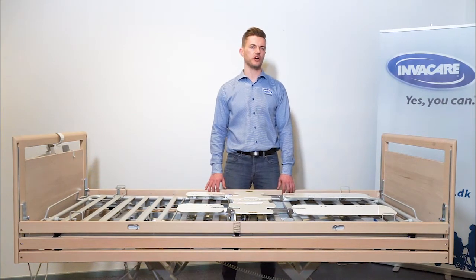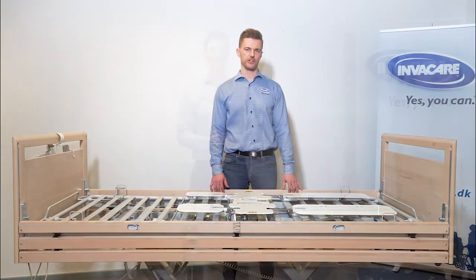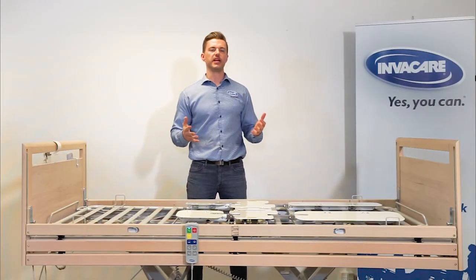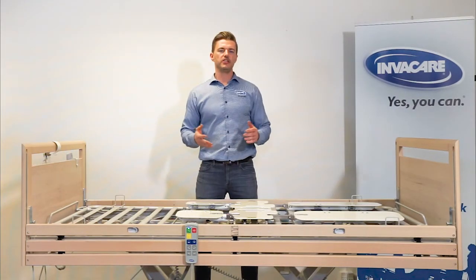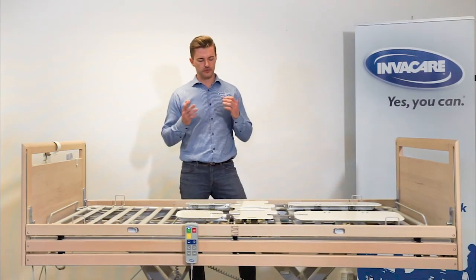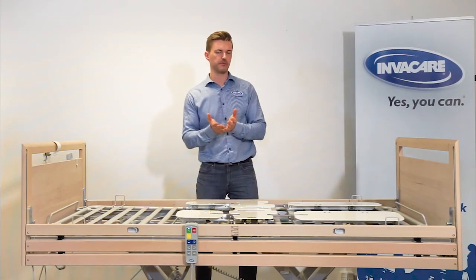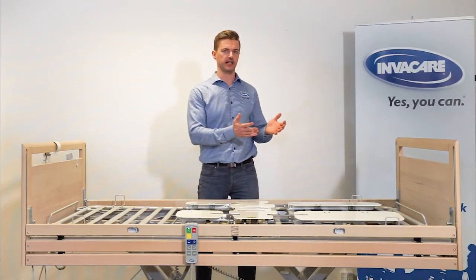Today I'll explain how the SoftTilt can turn the patient from side to side automatically and relieve pressure. SoftTilt can be programmed to reposition the patient throughout the night in a predefined pattern. The patient can be positioned on the left side, on the back, and on the right side. If adequate, you can relieve one area. That means, for example, you can switch between right side, back, and right side, relieving the left side.